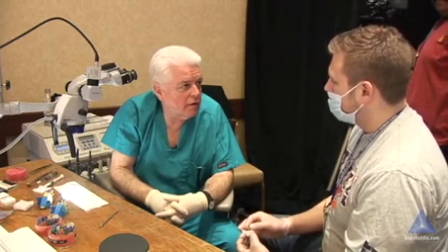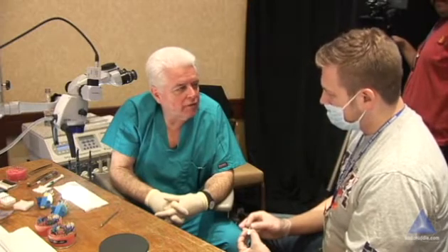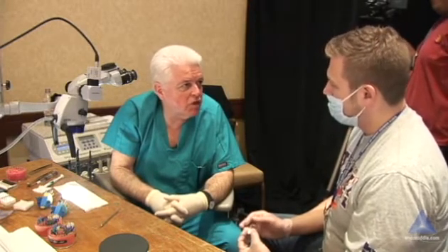I'd encourage the switch — I would like you to try Kerr Pulp Canal Sealer. You can start by trying it today. I think you'd love it. You can do all your bonding and restorative dentistry with no concerns about adhesion.